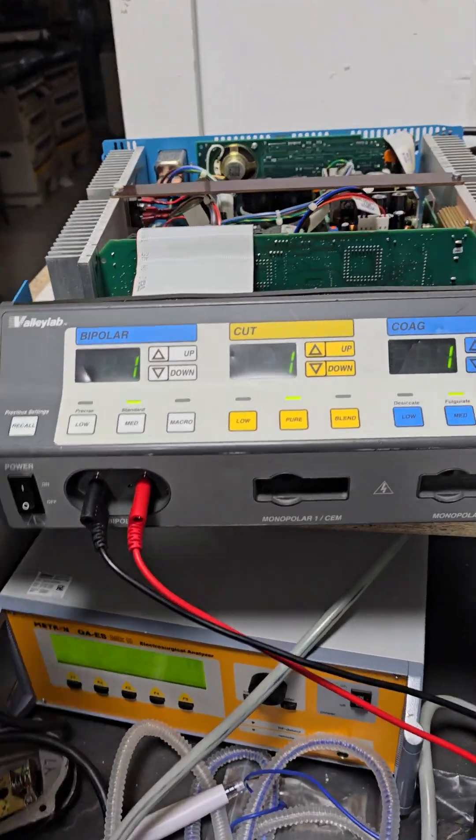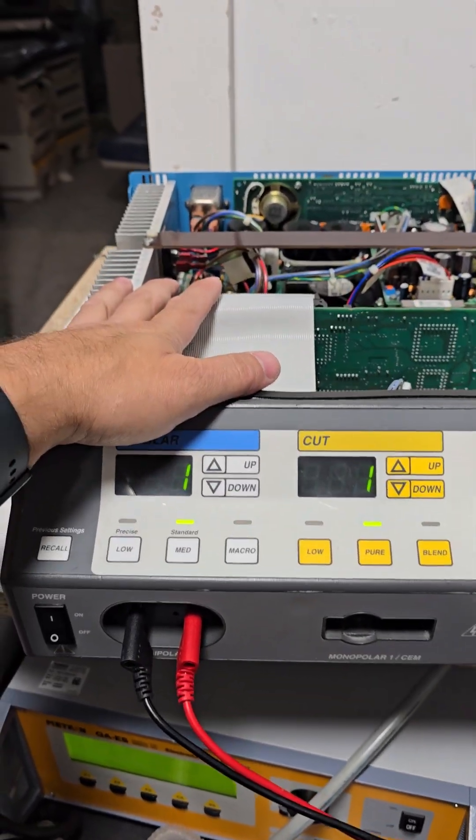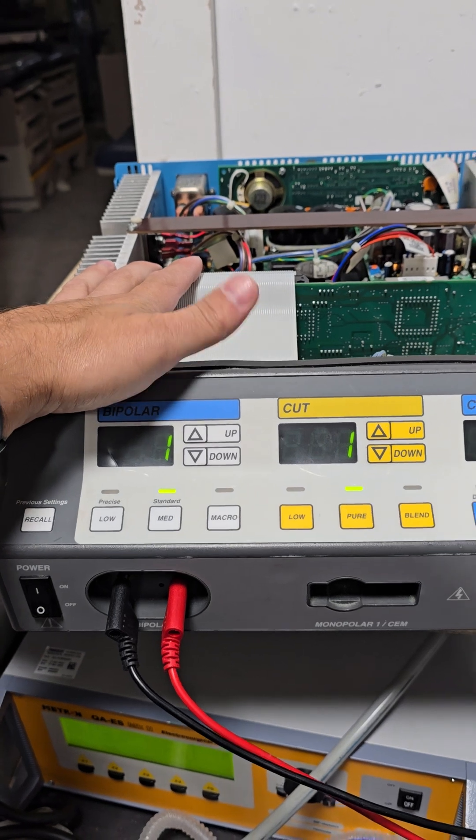Alright, Valleylab Force FX calibration. We're going to do the first four steps.